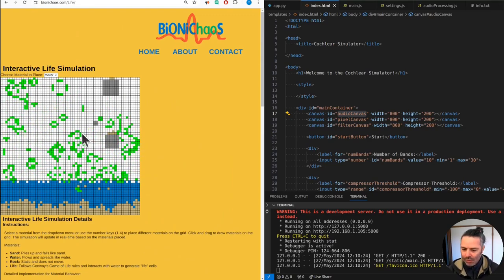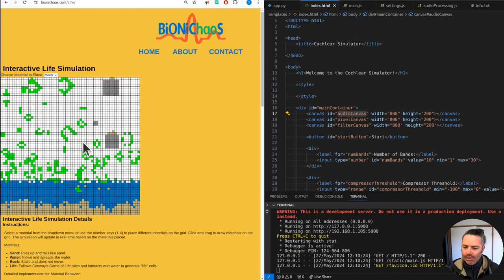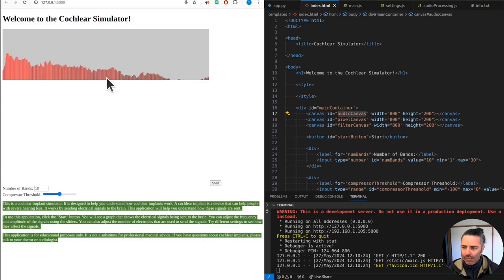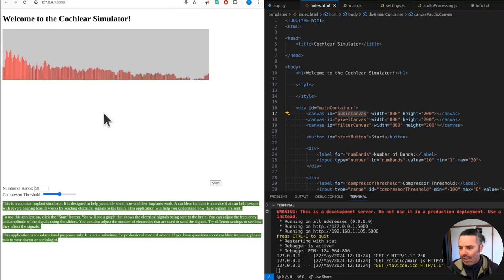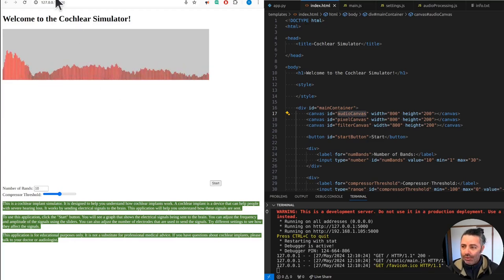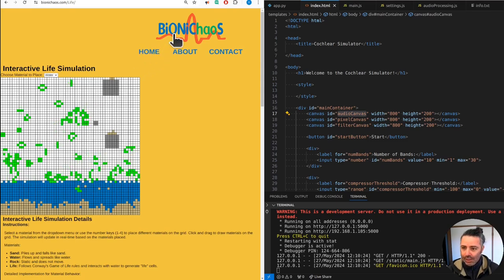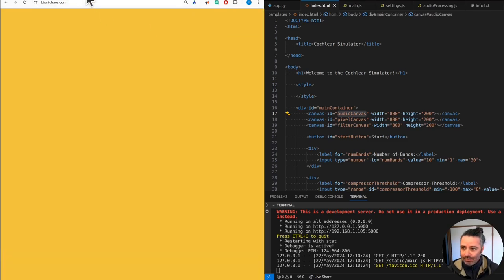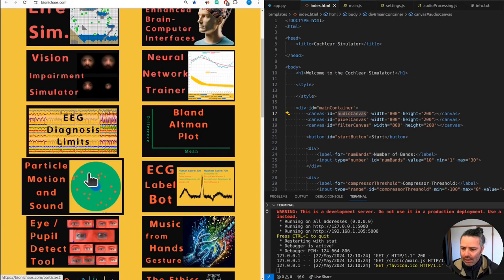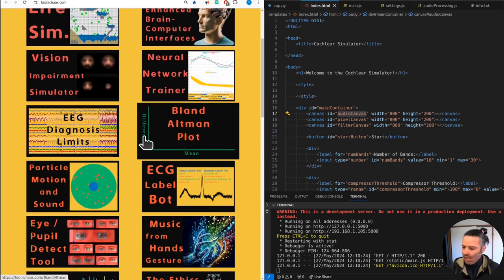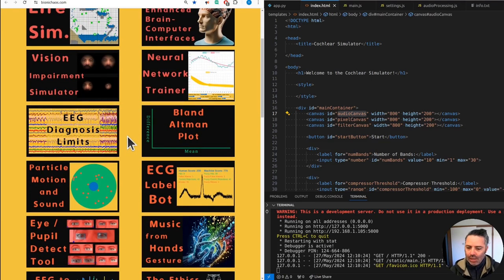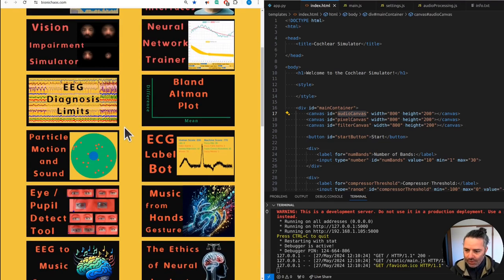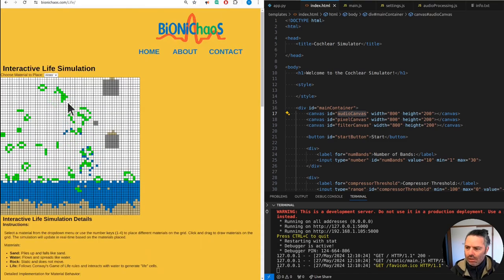This will be similar to the live simulation but just an array, much simpler, obviously just an electrode array with 20 pixels that will go on and off depending on the incoming sound using a microphone, ideally. In some of the tools I have to make sure that if you're not turning your camera or microphone on, they still provide you something useful, potentially just placing a video in there below the actual application.